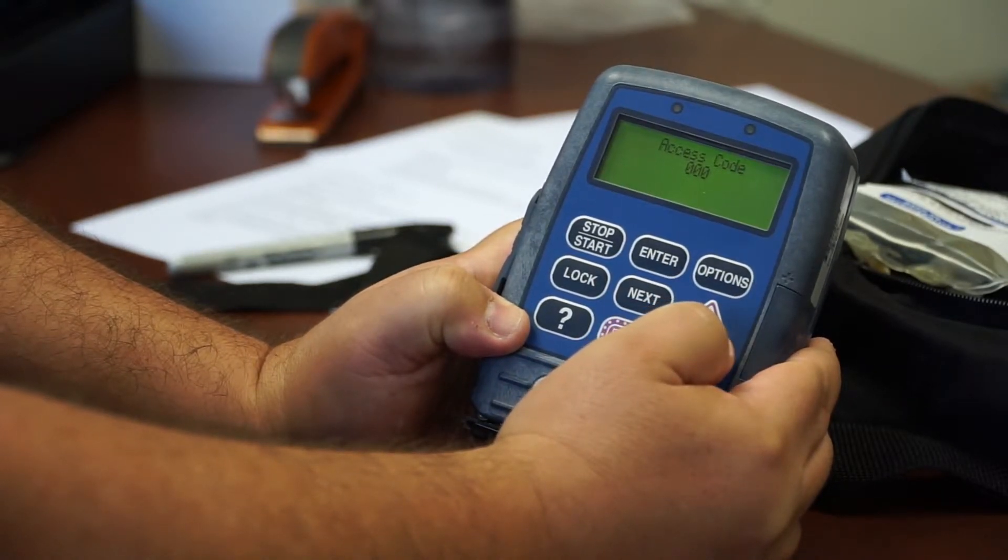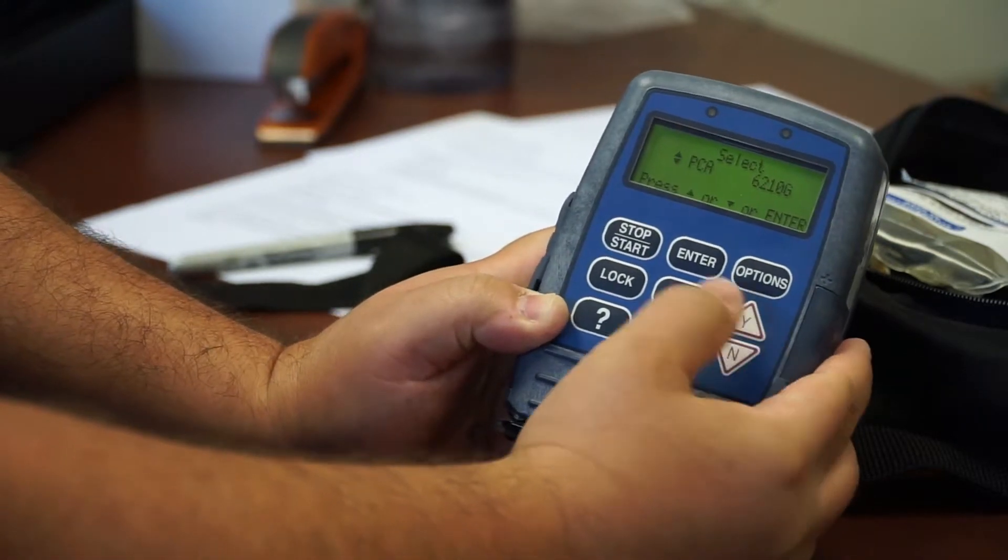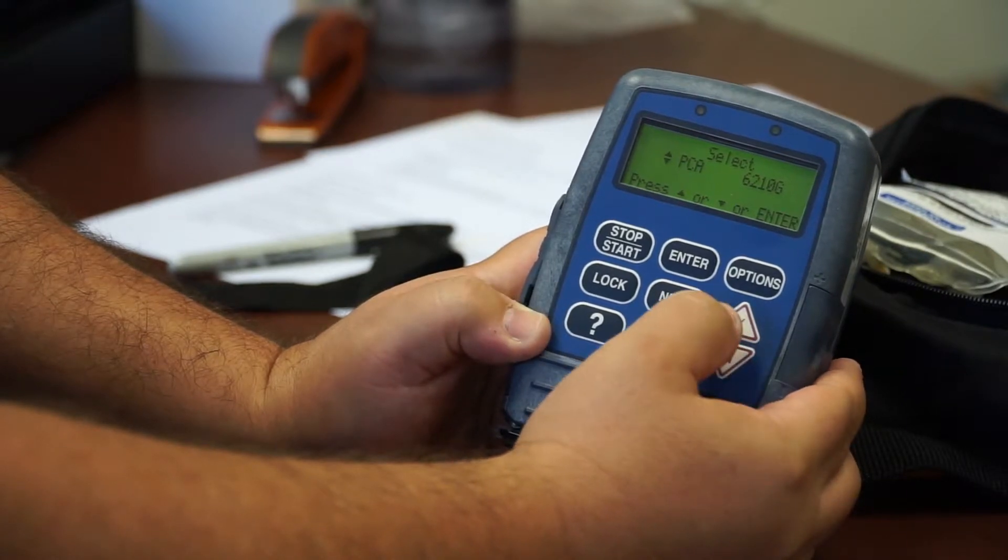And then it will ask you for another access code, which, again, we can't tell you. So, now the access code was put in, and now it gives us access to the different modes.